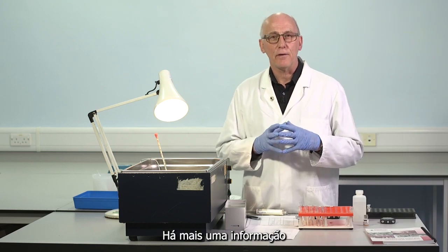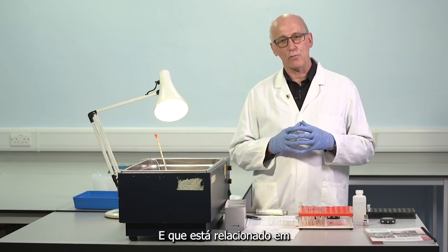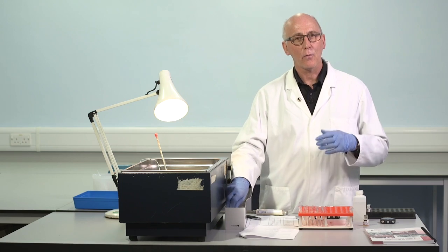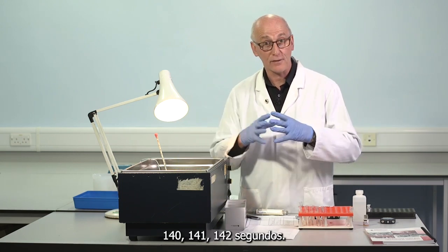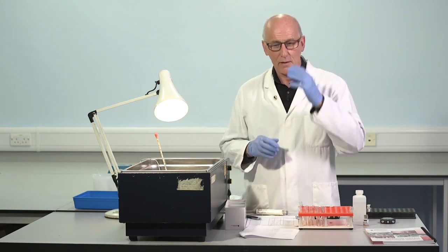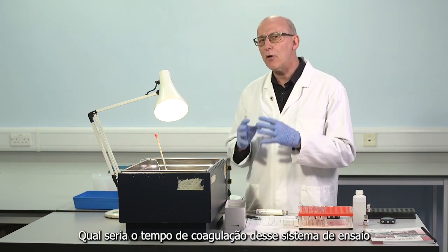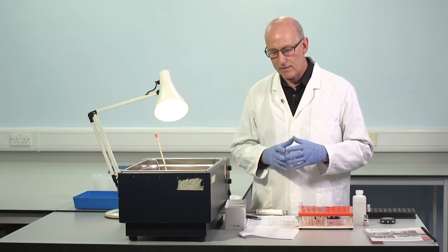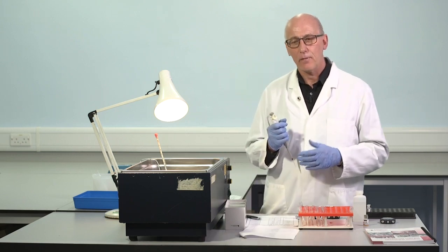There is one more piece of information we need, and that helps us interpret the results in the patient sample where we obtained very long clotting times. 140 seconds, 141, 142, very similar clotting times in 3 different dilutions. So what we need to know is, what would be the clotting time of this assay system if we didn't add any factor VIII? That's an important piece of information. And how do we obtain that information?